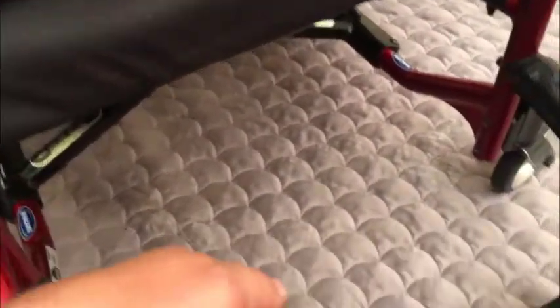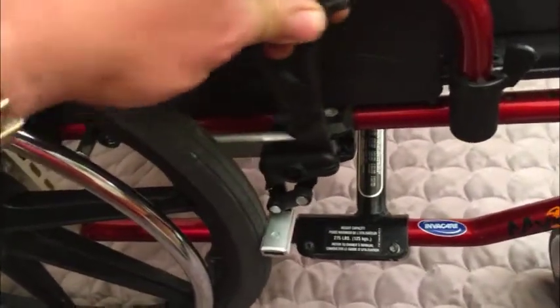17 inches from side to side between the handlebars, 19 inches deep, and it's also 17 inches high from the floor to the base of the seat. Tires and wheels are in great shape — they're 20 inches — and the brakes function the way they should.